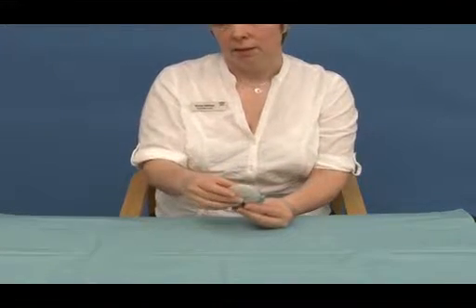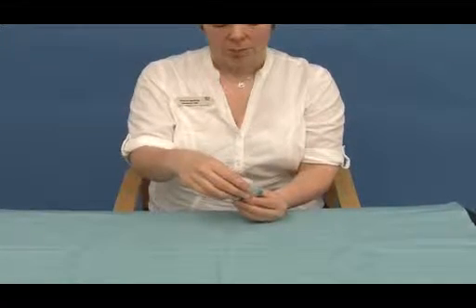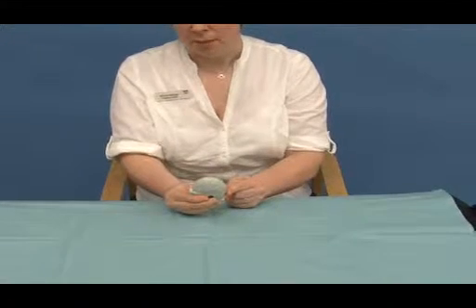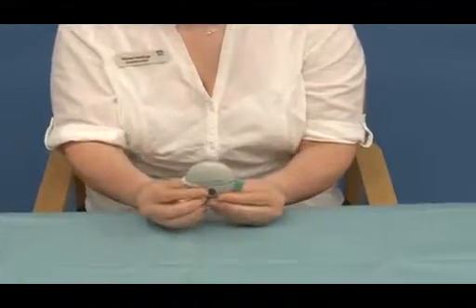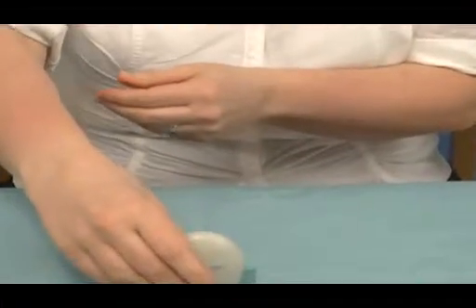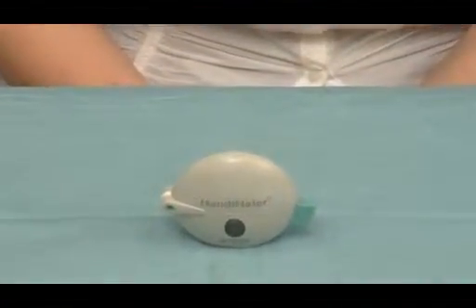When using the HandiHaler, the patients will hear the vibration of the capsule in the device, and this is very common. Important mistakes that patients do make with this device is that they depress the button at the side but unfortunately do not release it, therefore no medication will actually be administered. There's no dose counter on this, it is a month's supply of capsules.